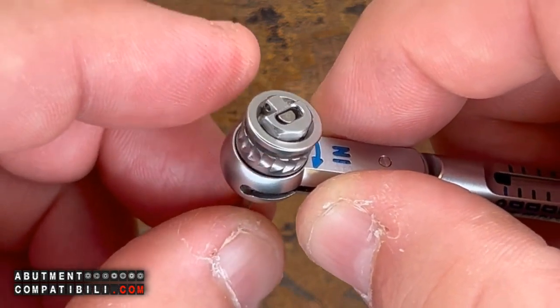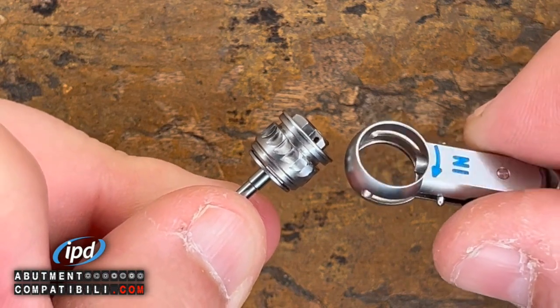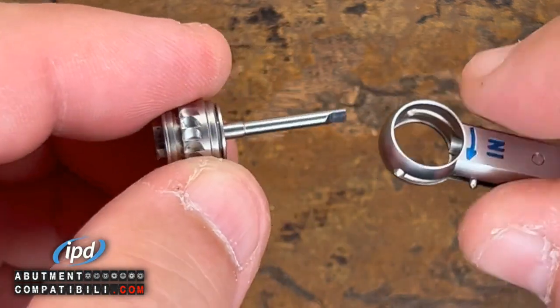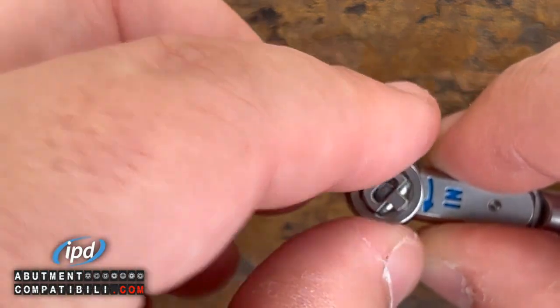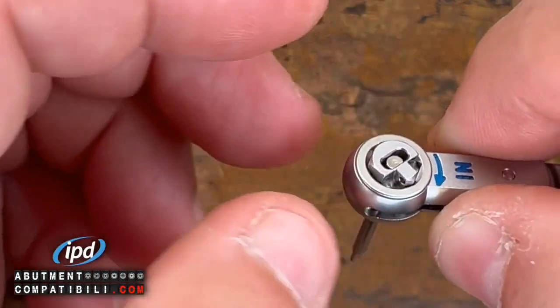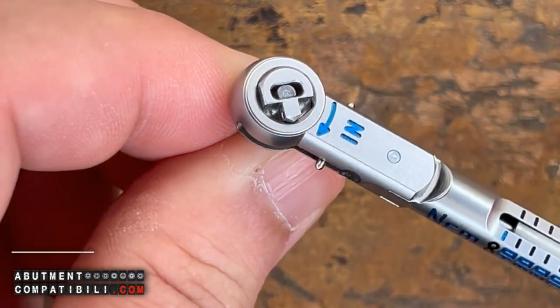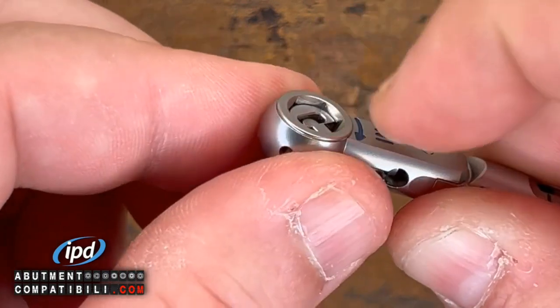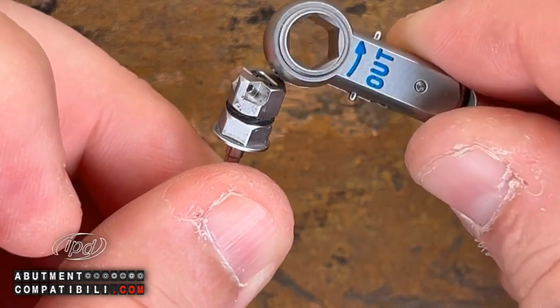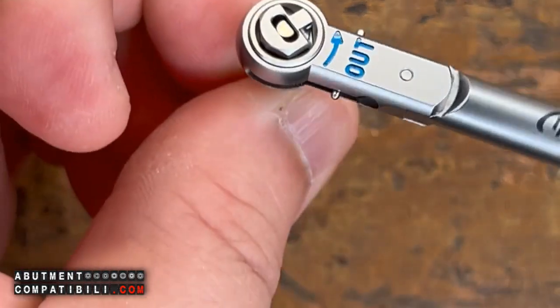I do not completely extract the pawl — which is the gear. If I disassemble the entire gear, it is because I want to perform maintenance and cleaning. I can use the entire gear as a handle to avoid unscrewing my through screws, but not to change the direction of work. Therefore, the two side flaps are needed to disassemble the gear. To change direction: I extract the hexagon by applying pressure, turn the ratchet to the out direction, and reinsert the hexagon. At this point, it works in the opposite direction.